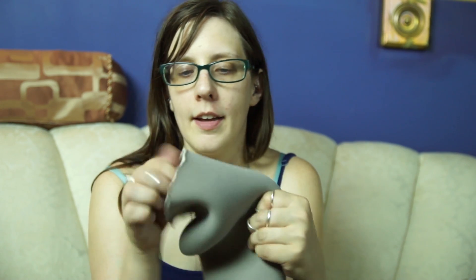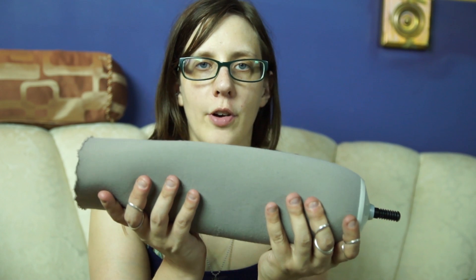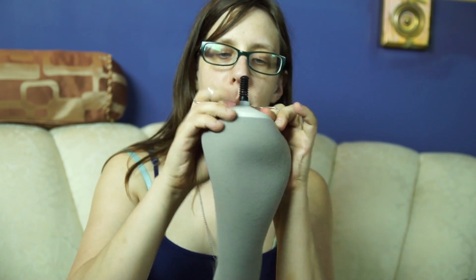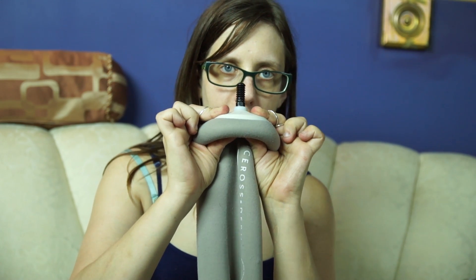Liners usually have a cloth outer material, but not always, and the inner material is made of silicone or gel. The silicone or gel comes in different thicknesses, ranging from very thin, like 1mm, to 3mm, and all the way up to 6mm. In the case of this liner — this is an Iceross Dermo liner — the liner starts out at 3mm thick and gradually increases until it's about 7mm thick at the bottom, and then the very bottom of the liner is about 14mm thick.